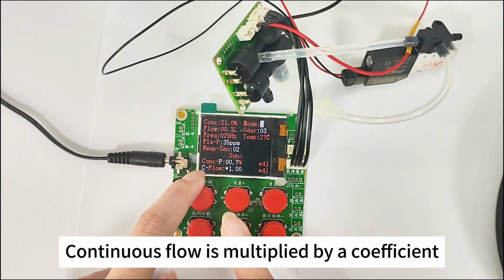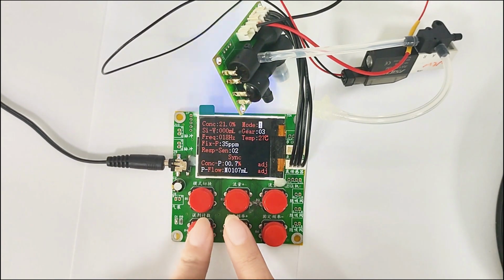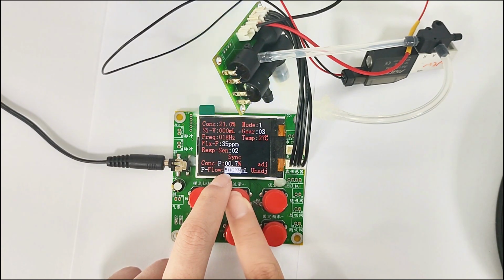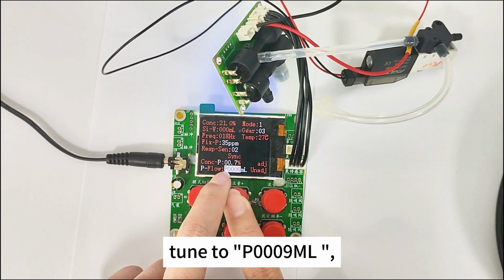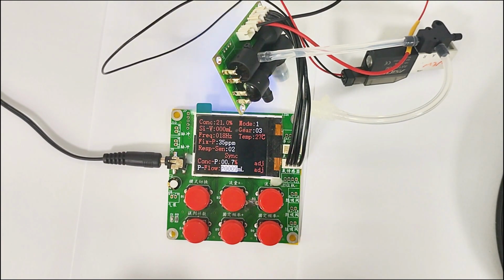Continuous flow is multiplied by a coefficient. For example, multiply the flow by 1.00. Pulse flow is adjusted by increasing or decreasing the value. Here M means decrease. We increase the data. Tune to P0009 milliliters. It means increase the flow by 9 milliliters. Then click the 6 button to save.